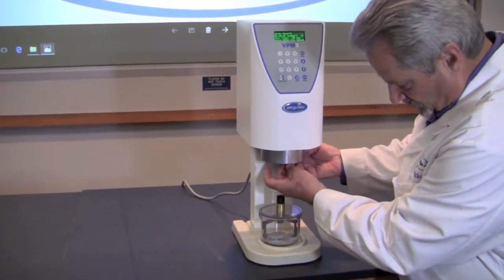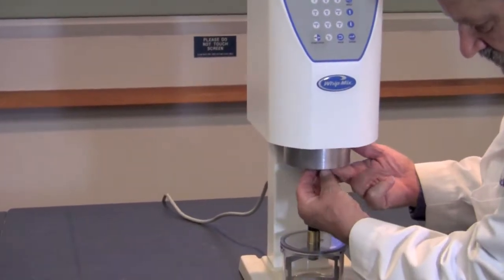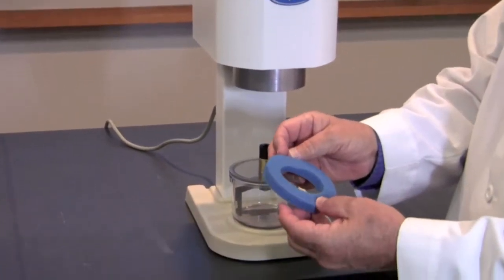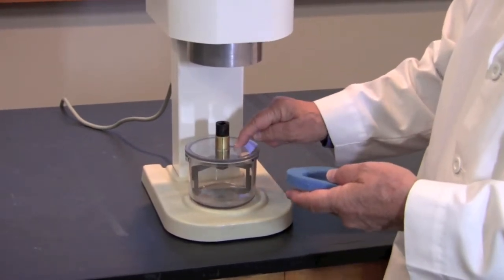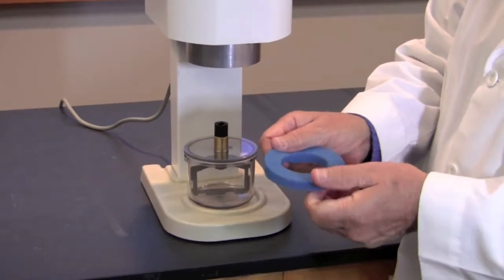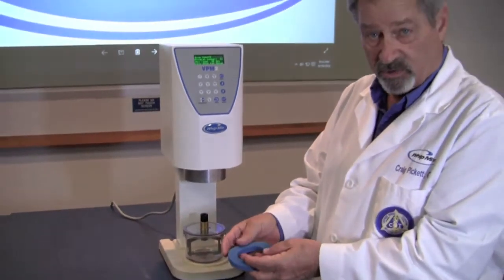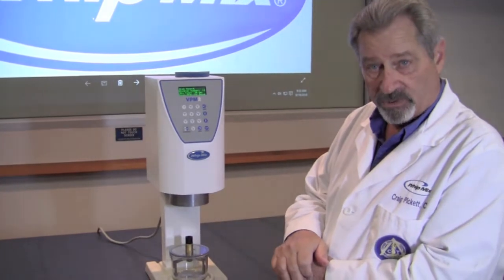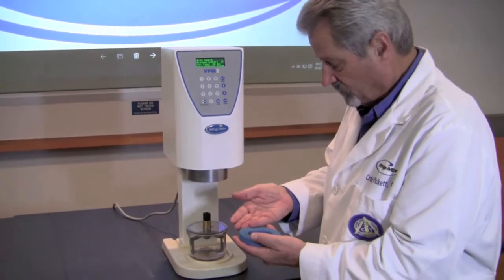In the throat of our machine here we have a filter — a foam filter — that can be taken out either using an instrument or your fingers. It looks like a donut and it helps us to trap anything that gets pulled through the vacuum hole in the lid. This filter should really be taken out once a week, washed out just like you would do a sponge, and set on top of the machine to let dry before it's replaced. That will help to keep the airflow good through the filter.